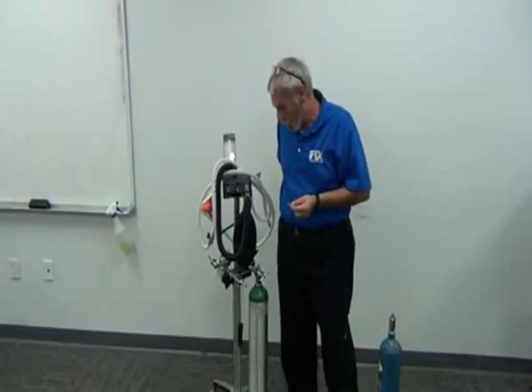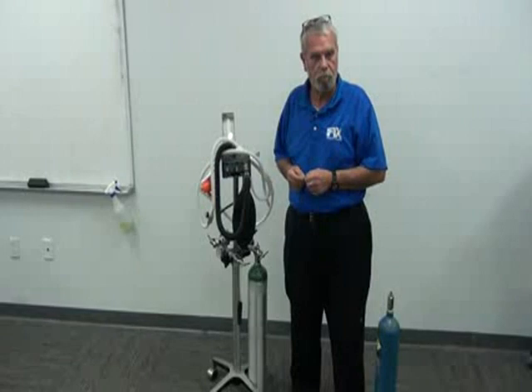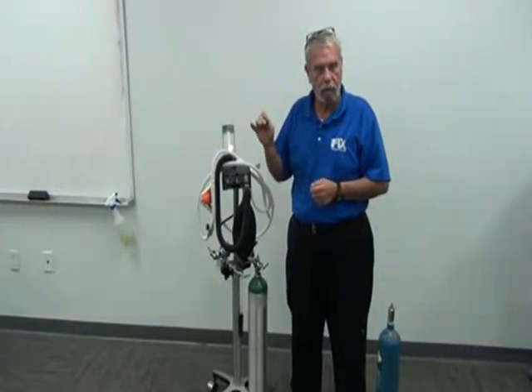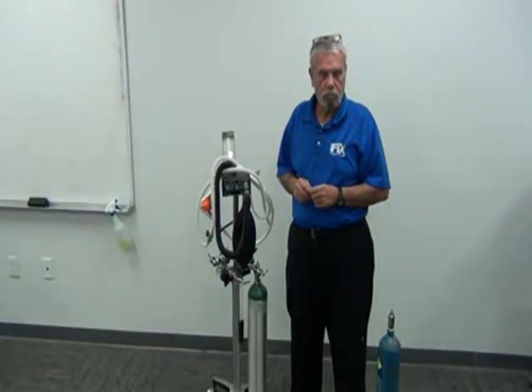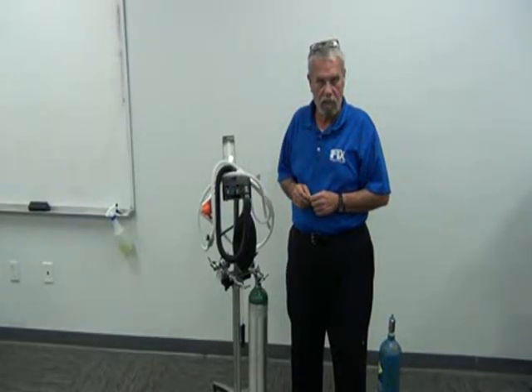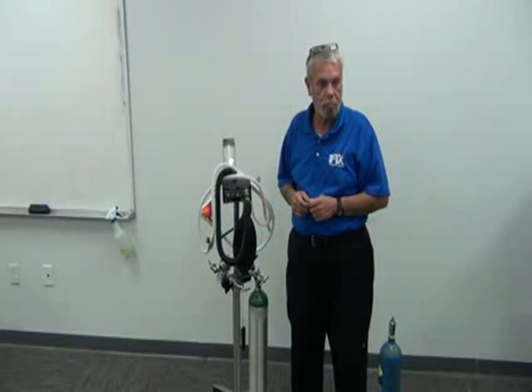And we can get washers for these if they keep losing washers. It's always best to put them in a coin envelope and take them up under the machine. That way you always know where the washers are. Get these washers from Belmed, the right metal ones, okay? Usually the bottled gas people will give them out with tanks when they change the tanks out. Usually the bottled gas people actually come in and change the tanks out for them, okay?